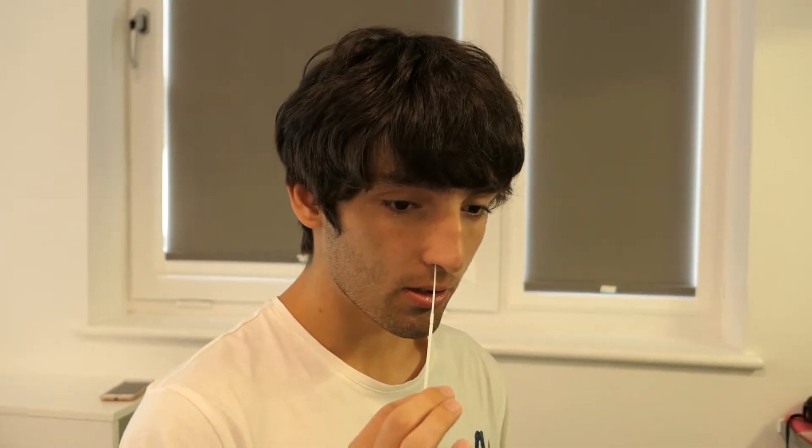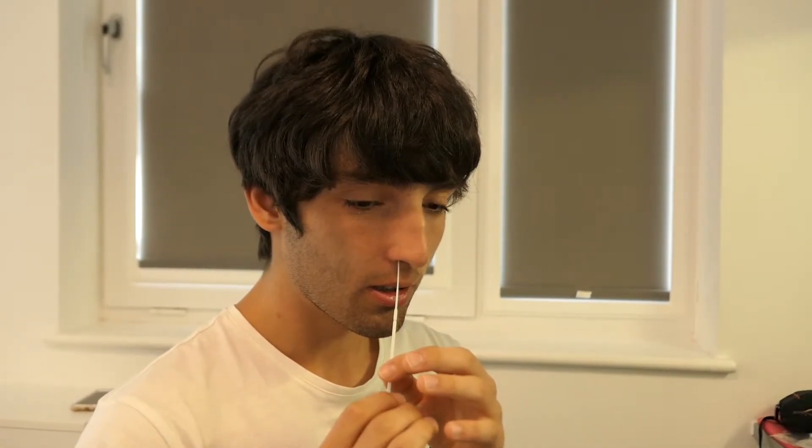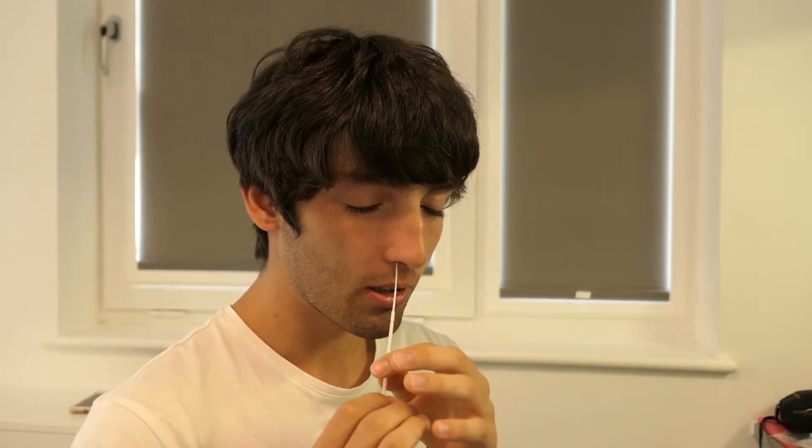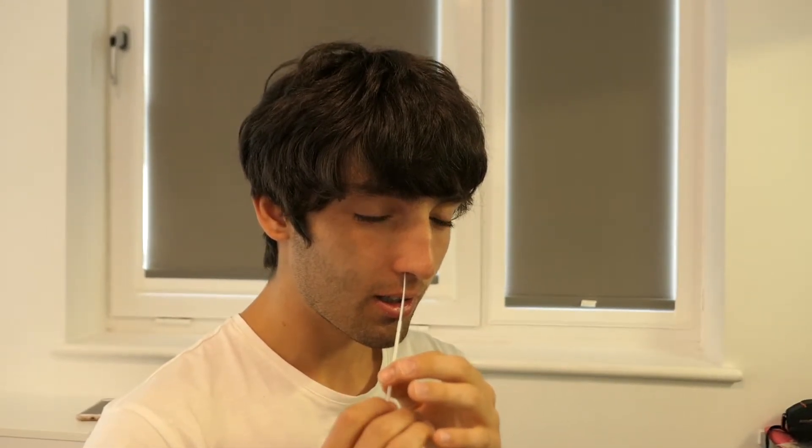Finally, gently insert the tip of the swab into your nostril until you feel gentle resistance. Then, hold the shaft of the swab and rotate 5 times for approximately 10 seconds, ensuring the tip of the swab is always in contact with the nasal wall.